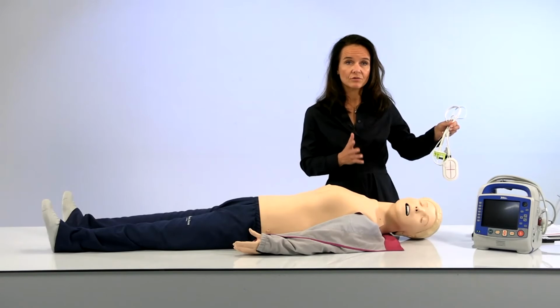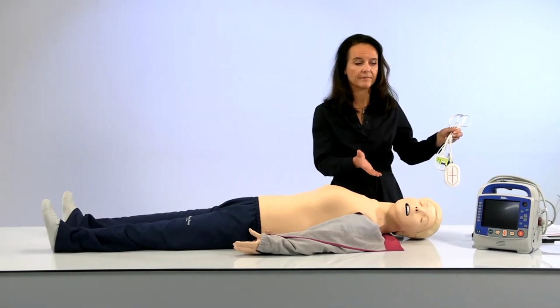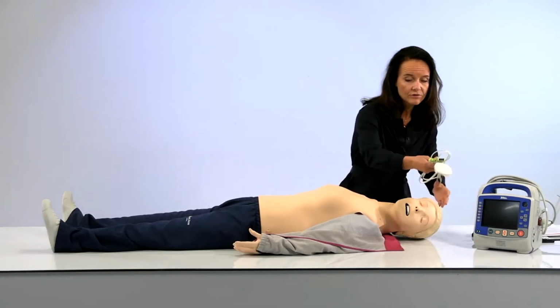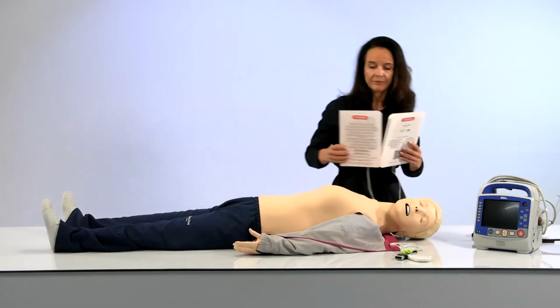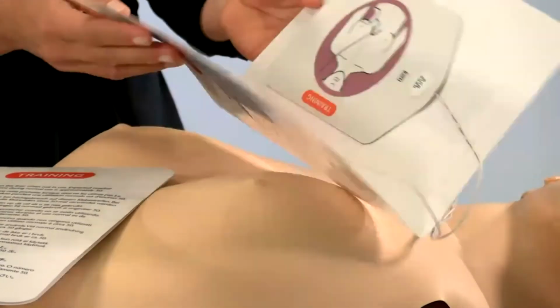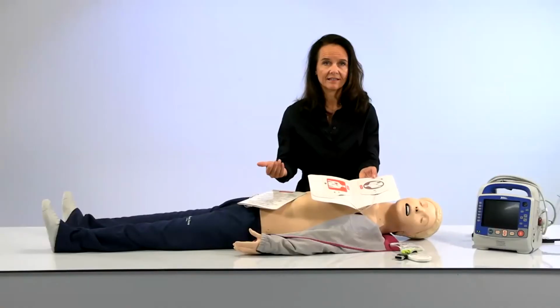However, you might choose to use the Zoll pads if you train with the ShockLink app, or as we say, ShockLink standalone without an AED mannequin. However, what you should be using are these Zoll adapted pads. These are Zoll pads, but they have ShockLink technology. And these pads are sold by Laerdal, one by one. So you can choose which pads you like, if you use the OneStep or the Stat pads.